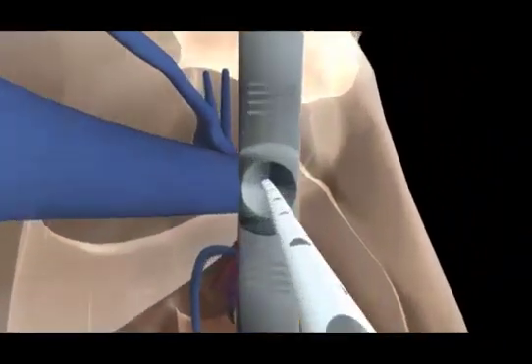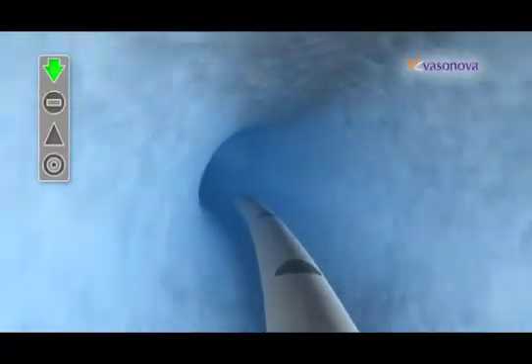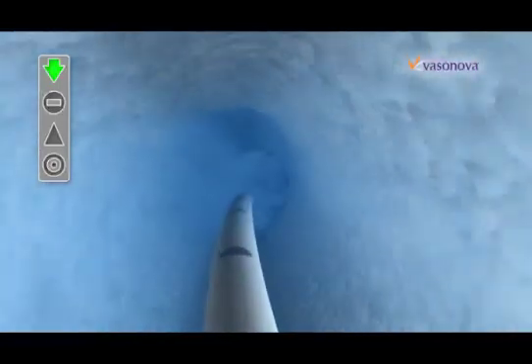Vasonova VPS technology is designed to use internal physiological information to specifically place the catheter tip in the optimal location within the vasculature.